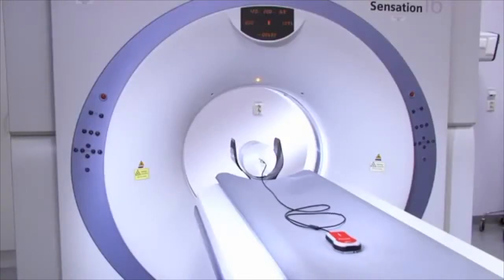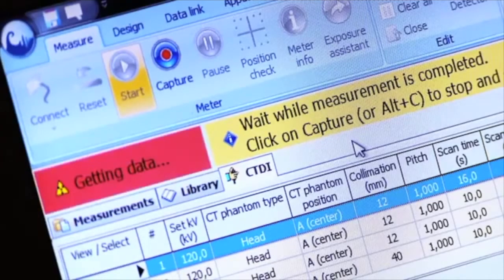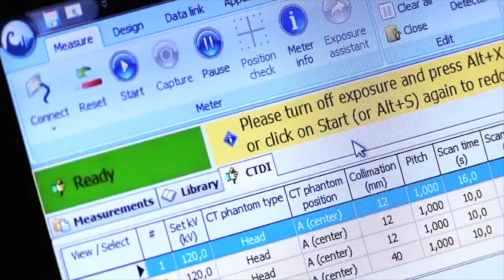The probe will move through the X-ray beam and you will be able to monitor progress as it counts up to 100%. The measurement process is now complete.